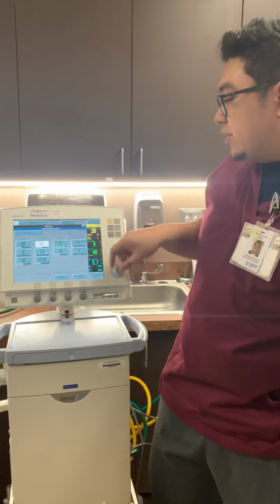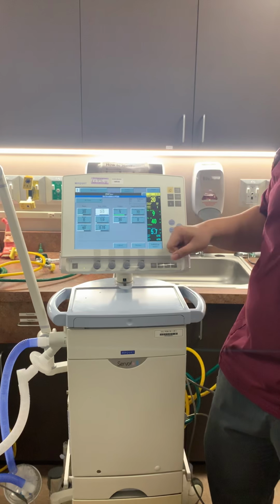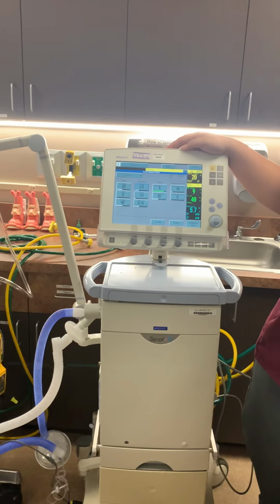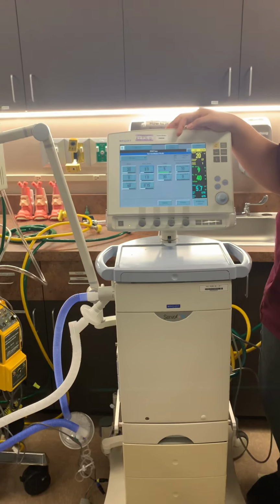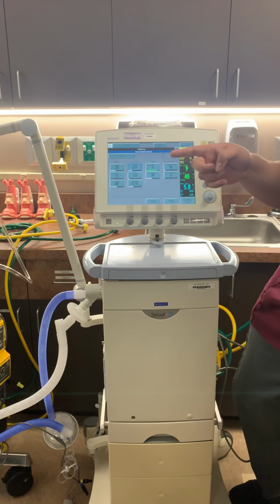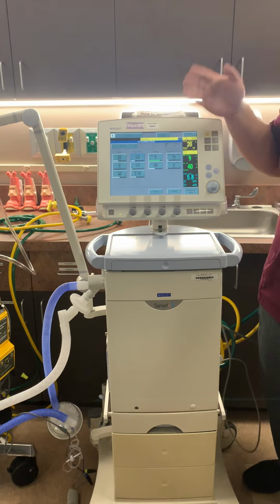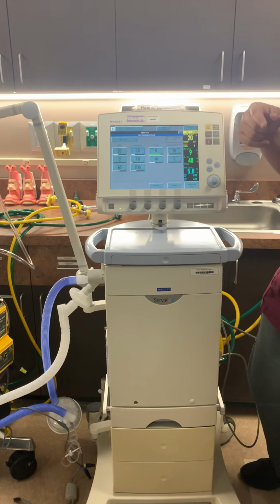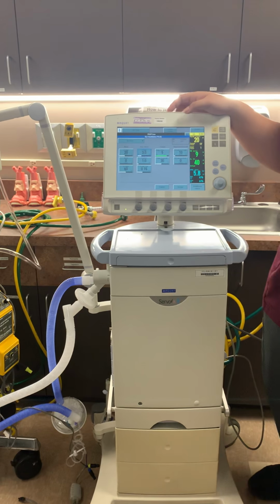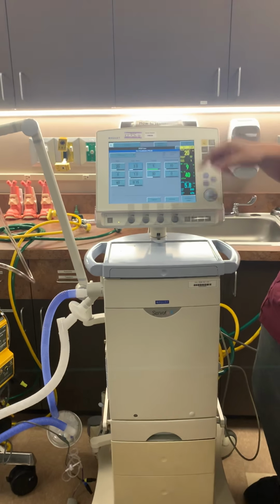So earlier, let me turn this down. If we turn down the time at inspiration, or if we turn down the T high, what will happen to our respiratory rate? Why would it decrease? Wait, no, hold on. No, it's going to be because they're going faster. Exactly. It will increase because you're spending less time there. So you won't be using as much time at inspiration. You'll be able to cycle more frequently, right? The respirations for this mode will be relatively low because you're focusing on the recruitment. I'm just going to fix the PEEP low here.